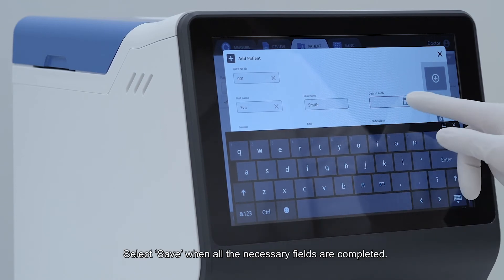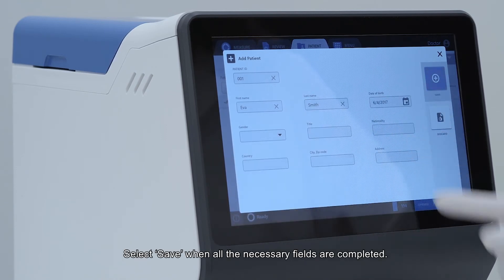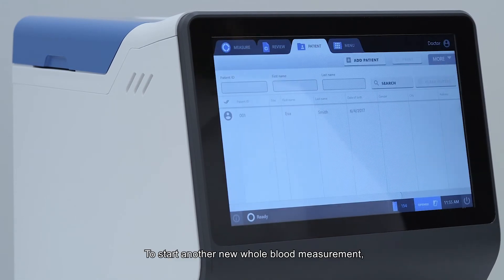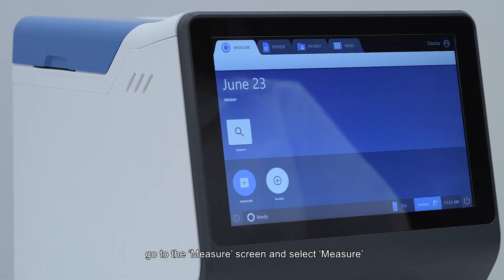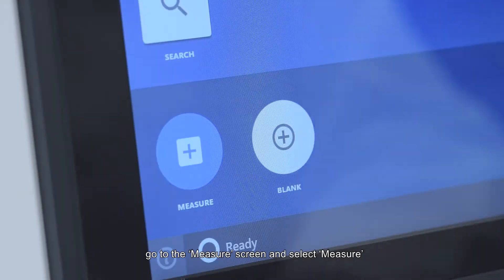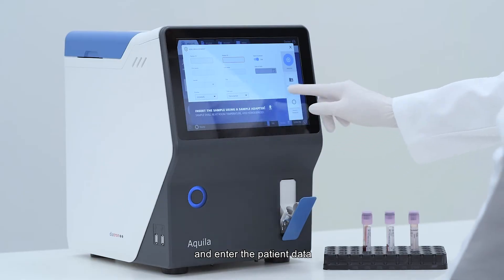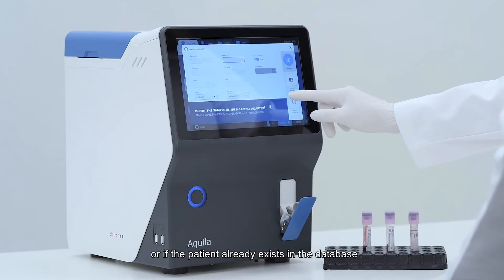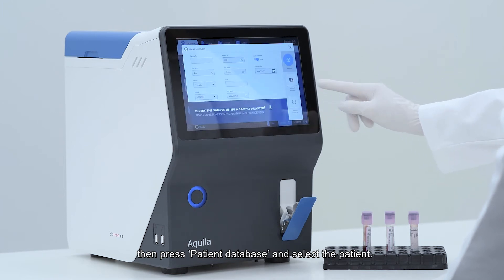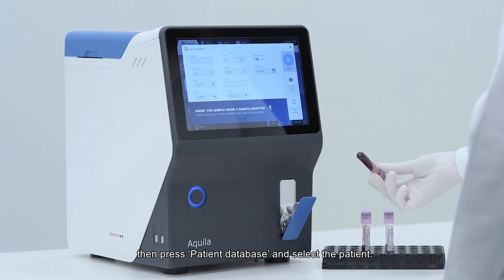Select save when all the necessary fields are completed. To start a new whole blood measurement, go to the measure screen and select measure, then enter the patient data. If the patient already exists in the database, press patient database and select the patient.